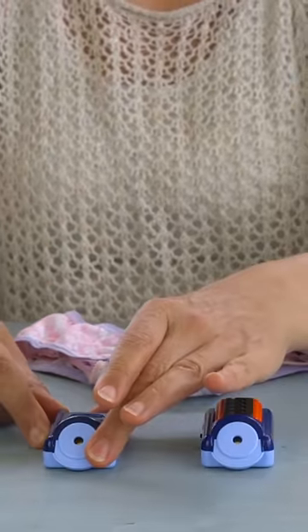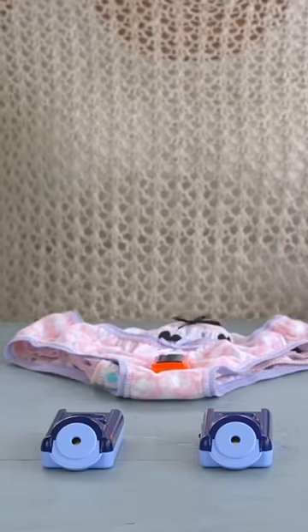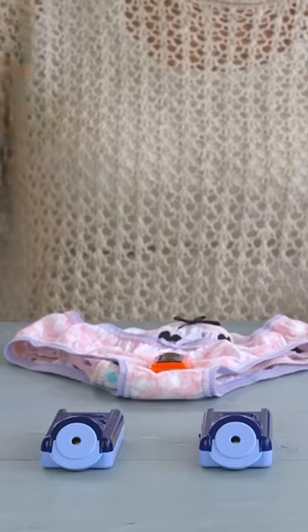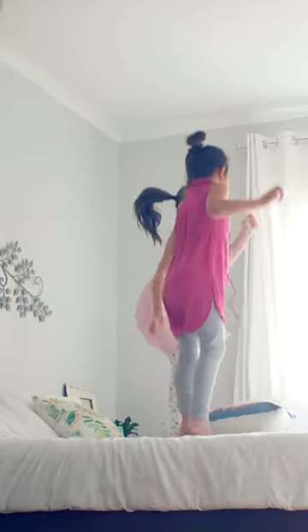To use the alarm, turn them on and place the sensor in the child's underwear. When the sensor detects urine, both alarms will trigger. In 2 to 12 weeks, most children have reached the goal of 14 dry nights or have shown signs of good improvement.